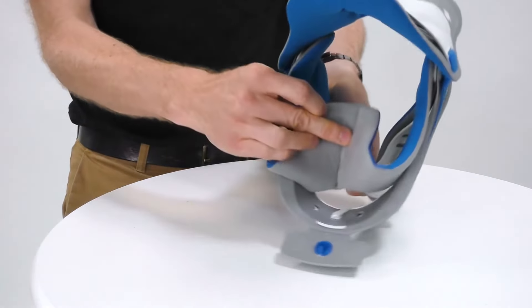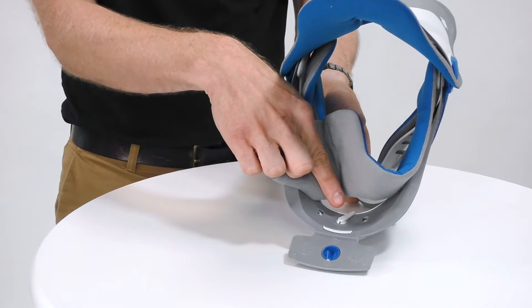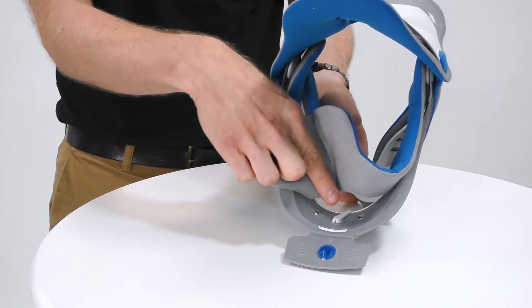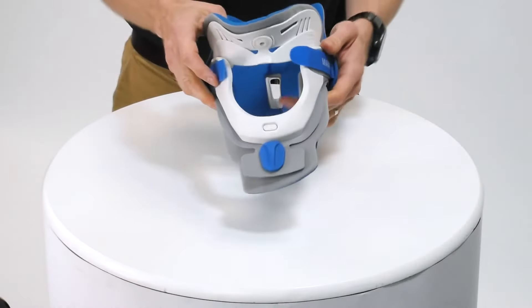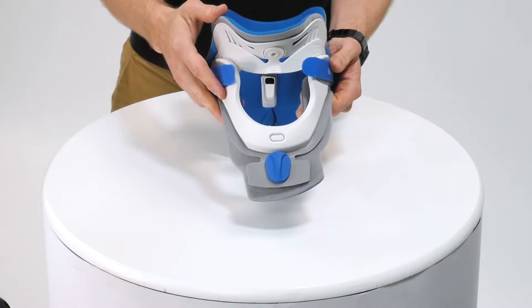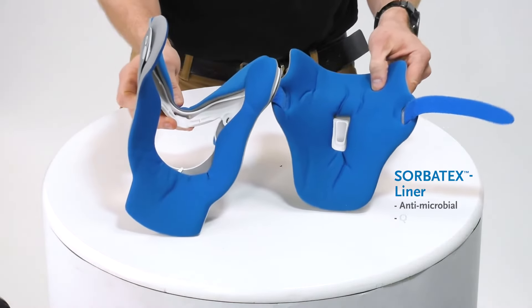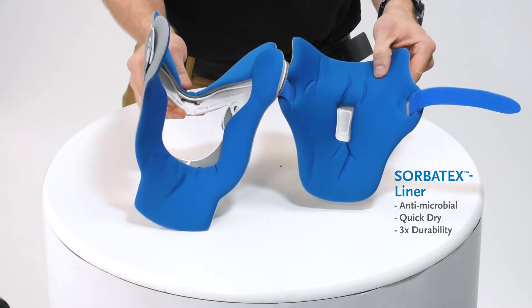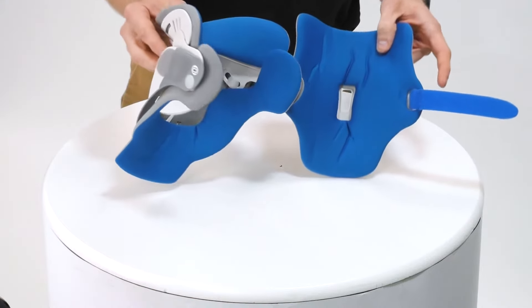As we look from the other side you can see the lever very clearly, and we can remove the tip of the lever with some snips if we want this to remain locked permanently. At the front we have a very large tracheal opening for patients with a tracheotomy, and as we open it up you can see antimicrobial biocompatible replaceable liners if we need to swap those out.